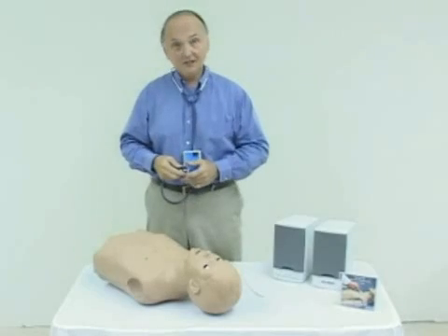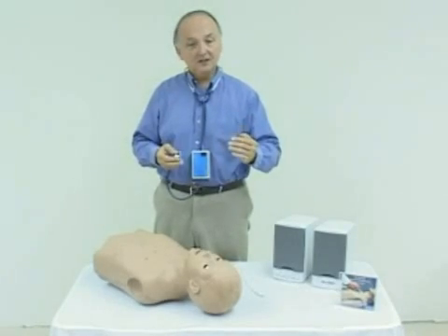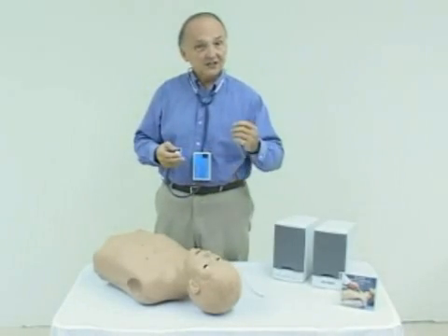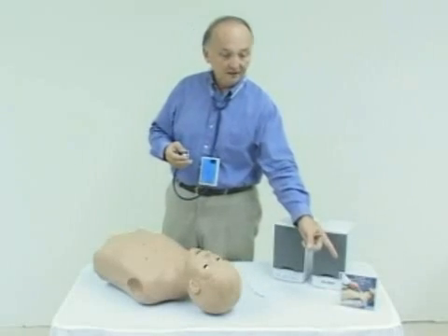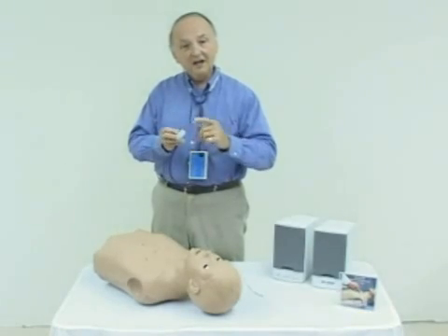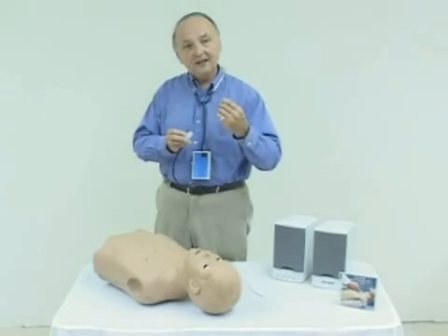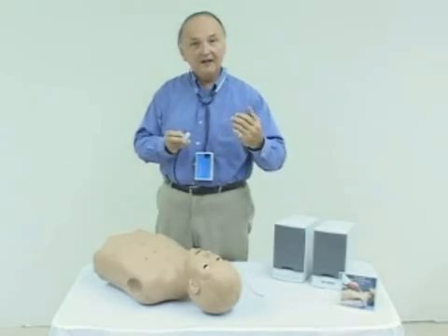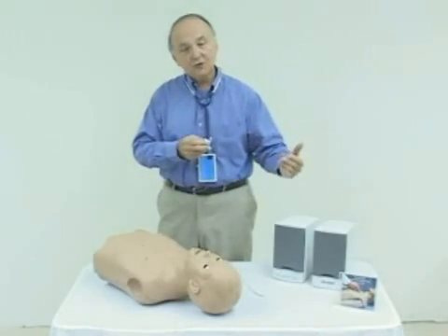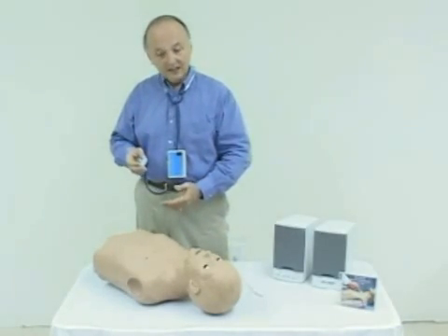Today we're going to talk about heart and lung sounds. We have designed four types of site-specific heart and lung sounds for our adult mannequins, available four different ways. First, you can get site-specific heart and lung sounds on a CD-ROM where the distal end of the stethoscope can be placed using the computer on a virtual image of the patient, and you'll be able to hear the sound appropriate for that position. We've had this feature on our advanced interactive mannequins for a number of years, and we've transported that technology over to these types of mannequins.